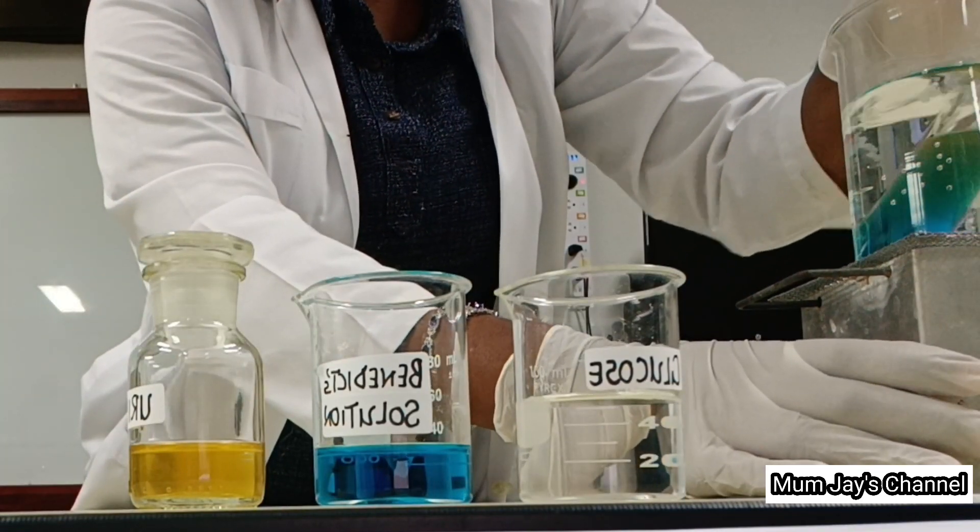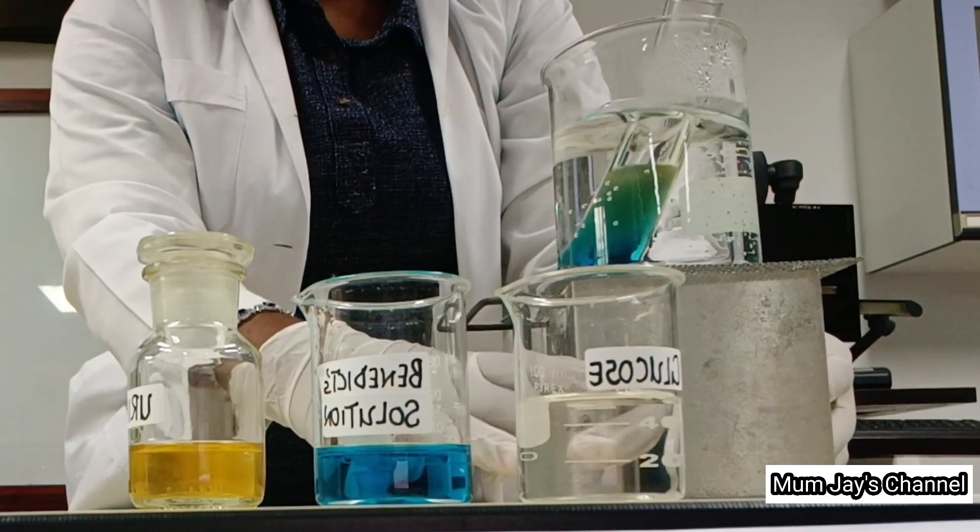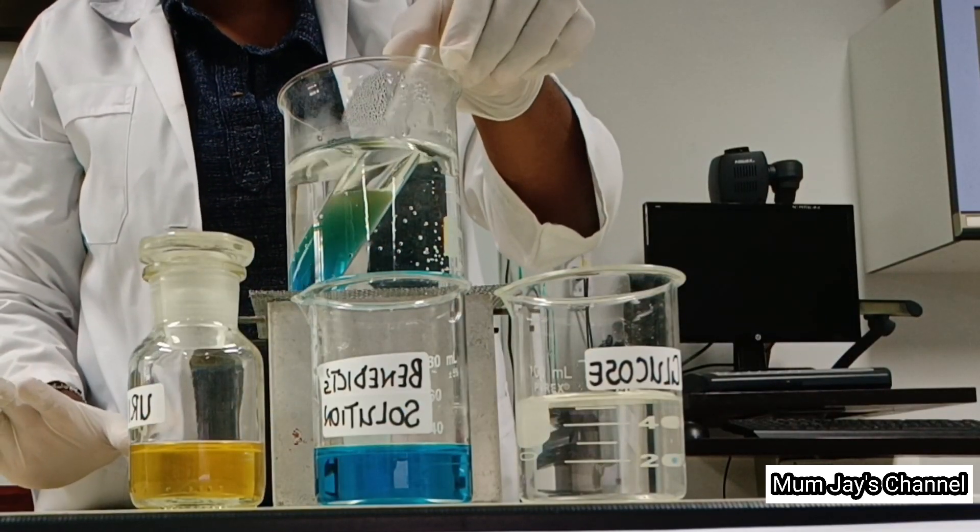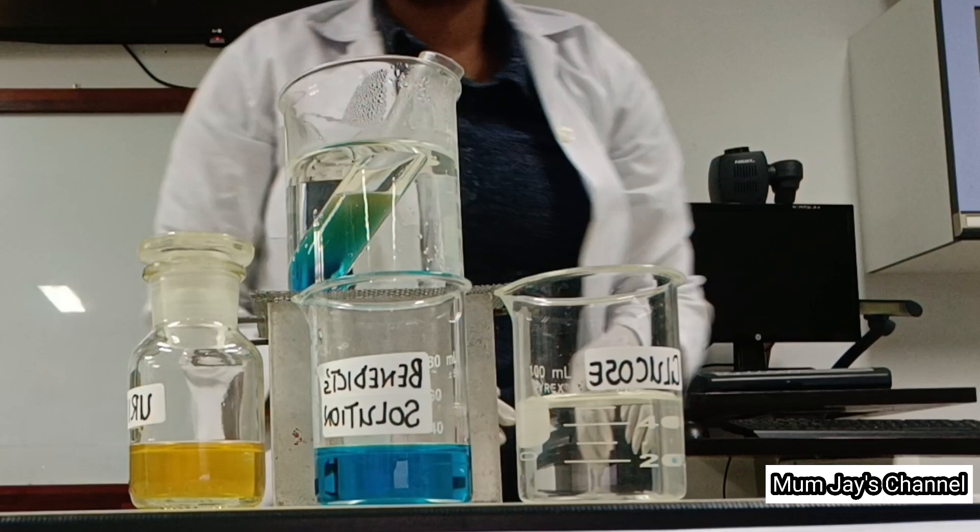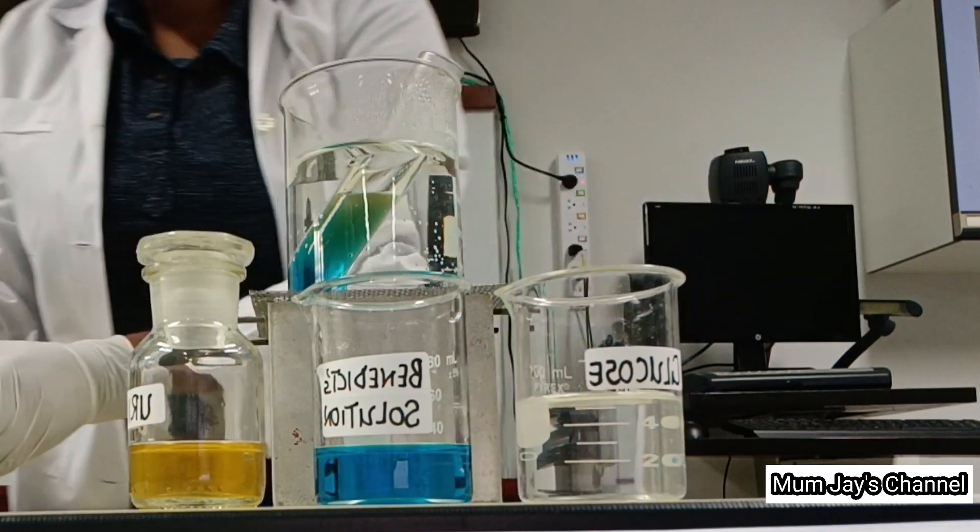We will then put this mixture in a water bath and leave for three to five minutes while observing the color change.